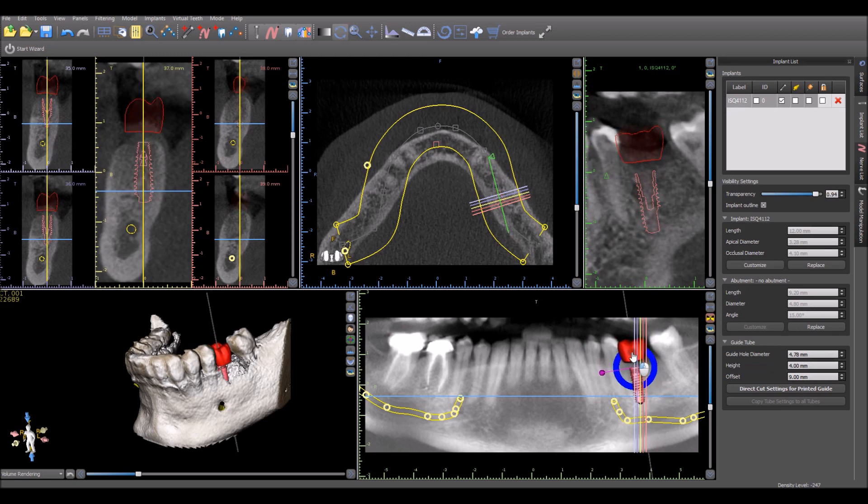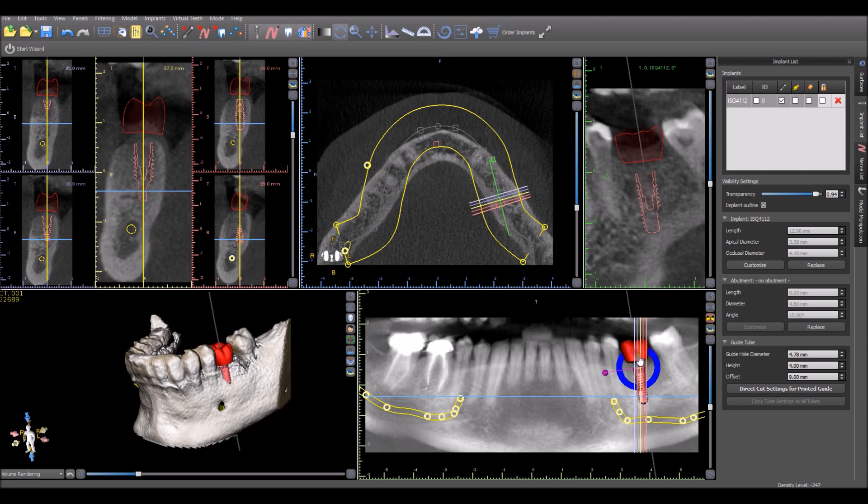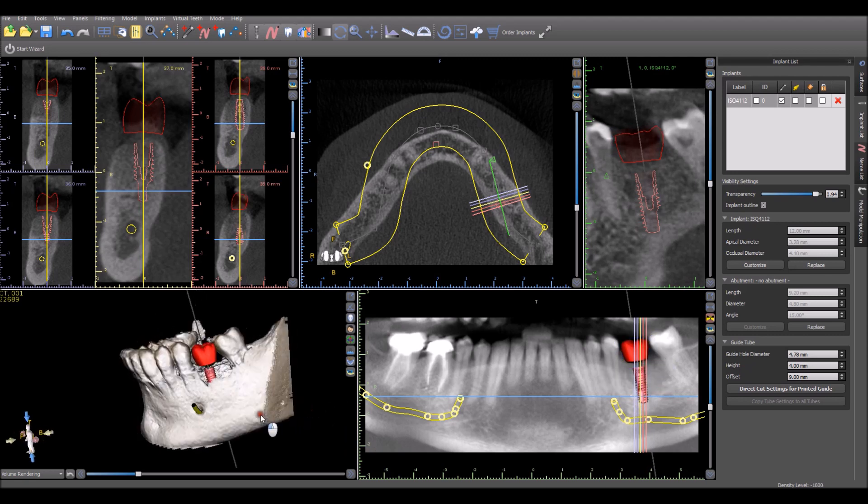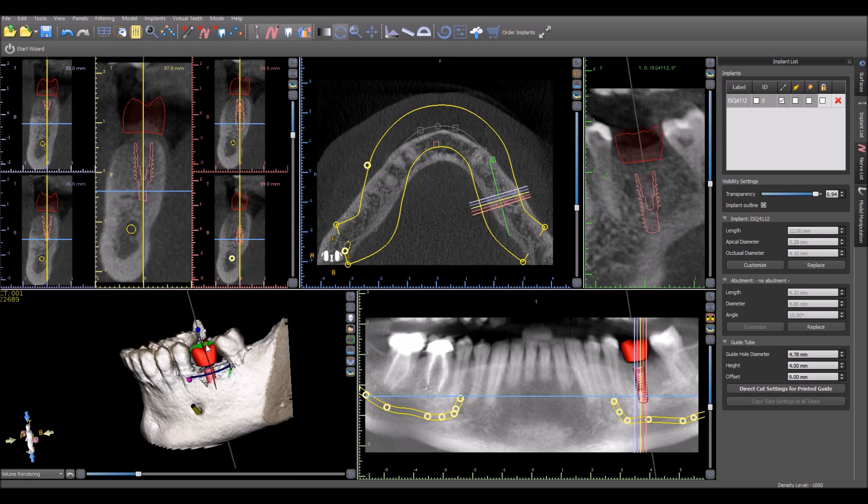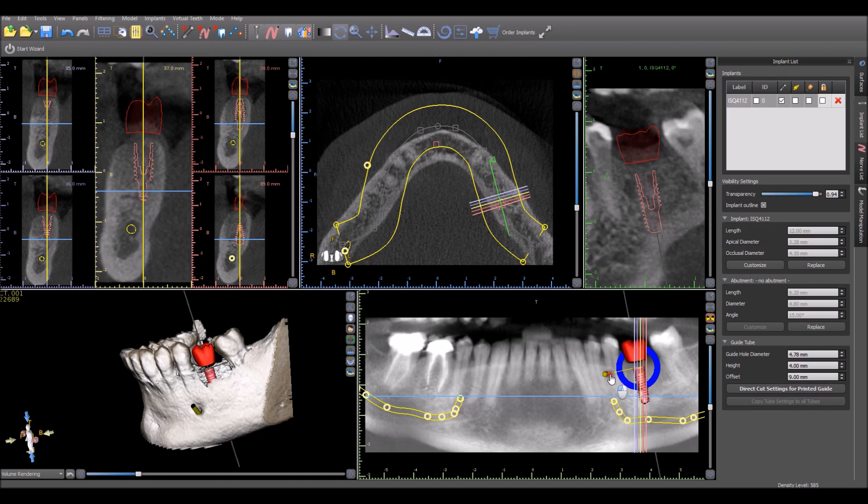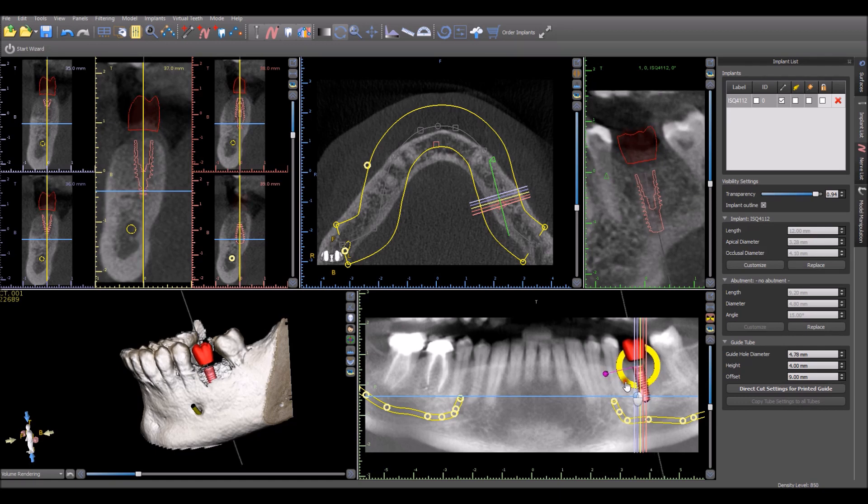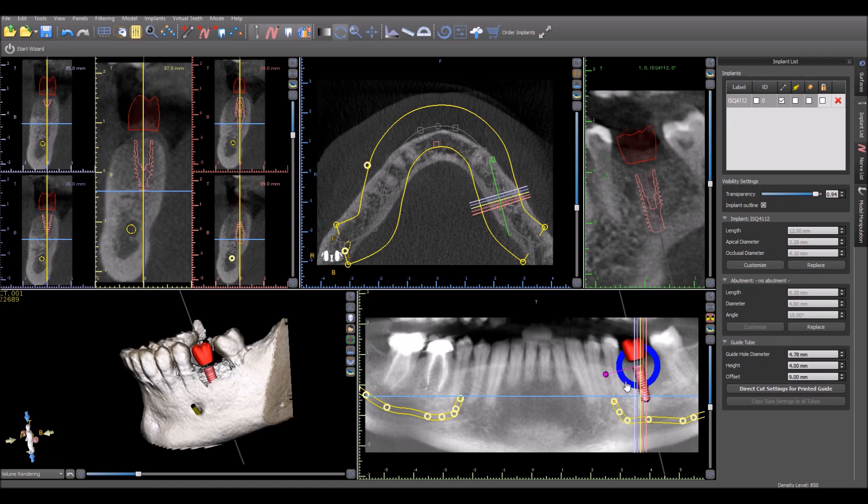The notification, that red exclamation mark that we saw previously, was an automatic validation detection. We were too close to the nerve. There are also settings that we could change in the software. So the red exclamation mark showed up. Here we can modify the placements in any view. We could also change the shape of the virtual tooth by grabbing the nodes. On the previous screen, there was also the option of small, medium, or large. But here we have options of fine-tuning the size as well.